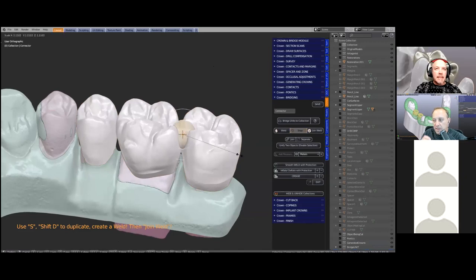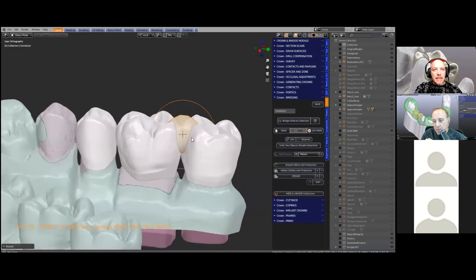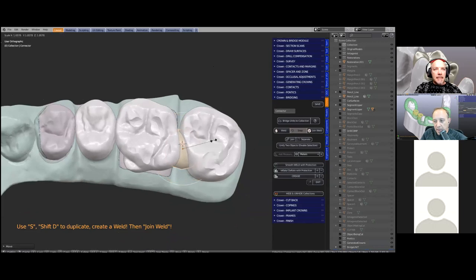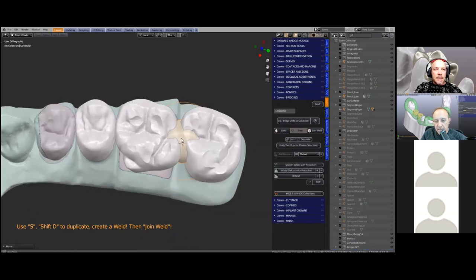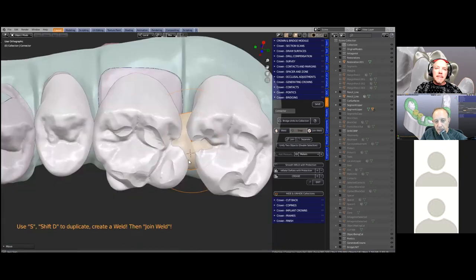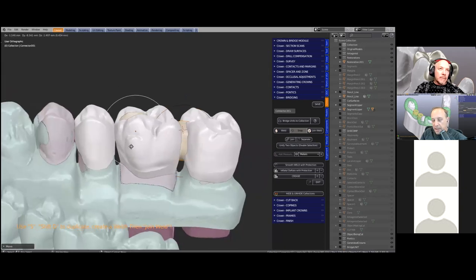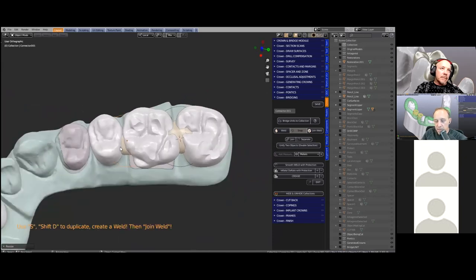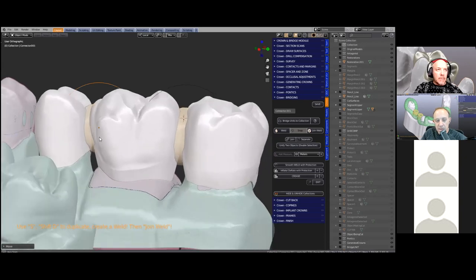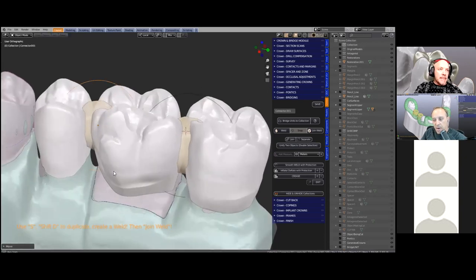On the underside you can see sort of pink guides — those will trim out if you make the contact a little bit too far down. In goes the contact bubble; you can scale it and submerge it into an ideal position. You can duplicate that and drag it over to another side, so if you've got multiple units you just use a duplicate version, or you can exit and start again from new. To save time you can just do both in one go.